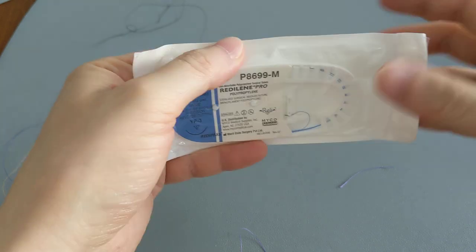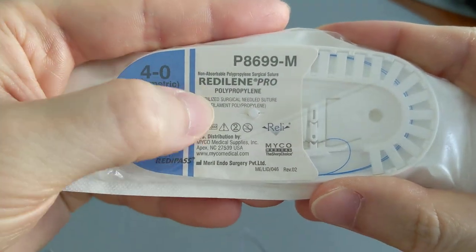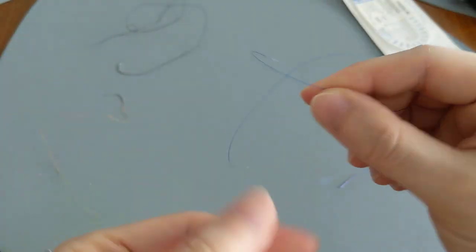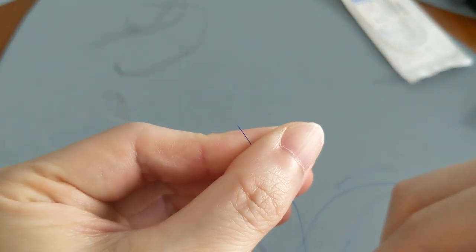But aside from the braided ones, they also come in monofilaments. So there's this blue one here — if you look, it says monofilament. This blue one is a single strand, so these will not have that fraying piece at the end. It's just a single strand.